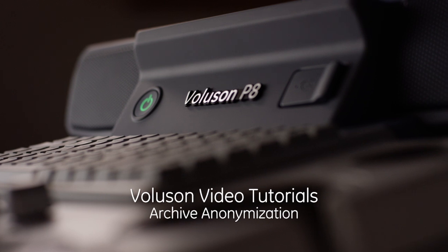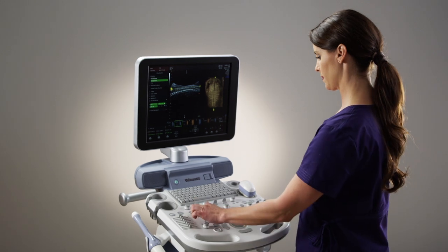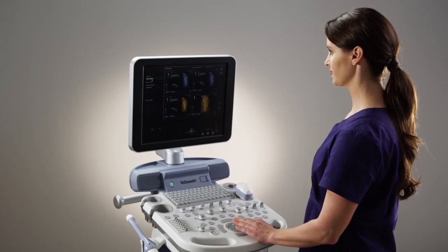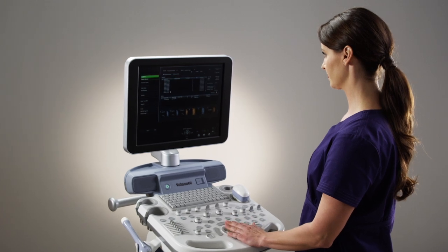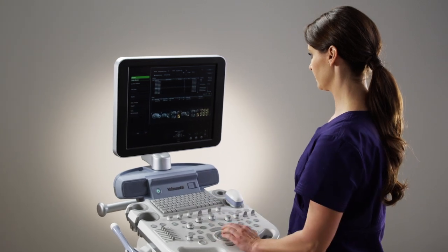Welcome to the Voluson video tutorial for archive anonymization. The Voluson systems provide an easy way to anonymize raw data images, volumes, or entire exams. This tool helps remove all patient data when utilizing volumes and images for presentations or teaching.